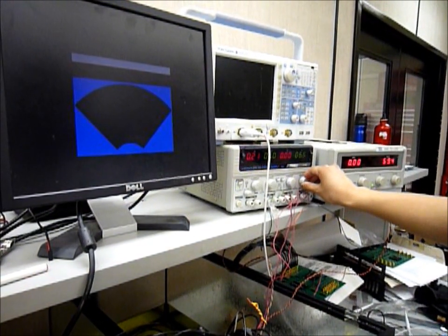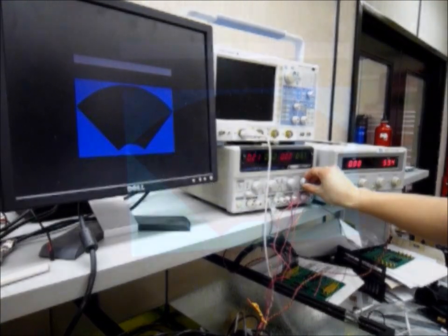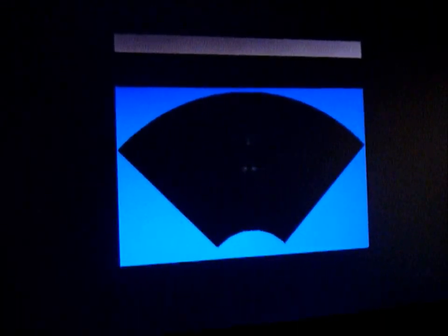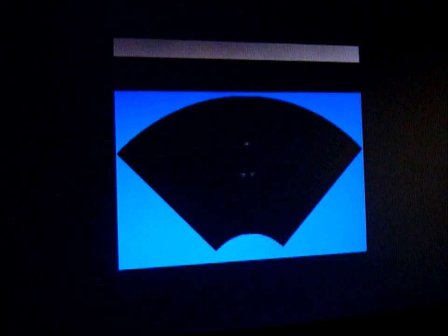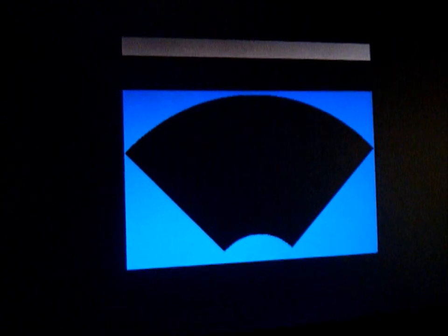There are stretched guitar strings that are placed at the bottom of the tank that we are trying to image. On the screen, the three white spots show the image of the guitar strings. Better quality CMUTs can help provide better resolution for these images.